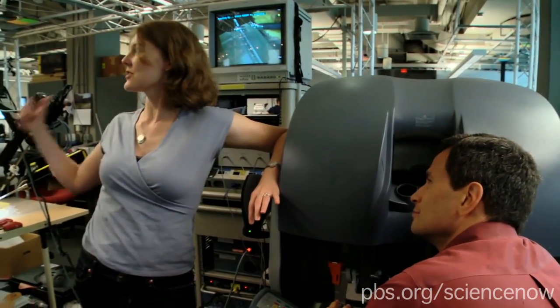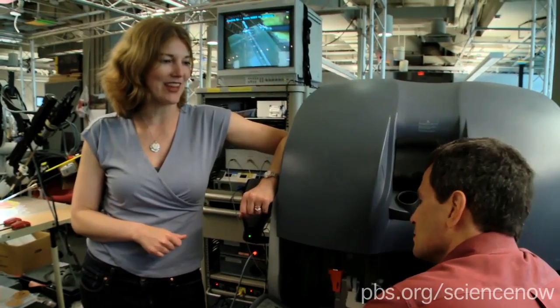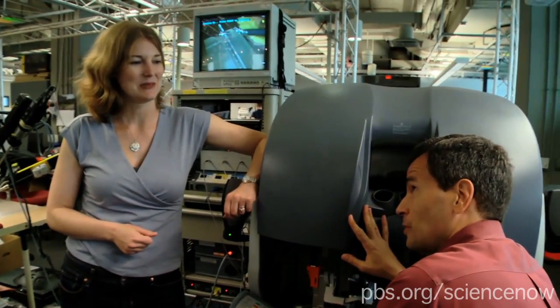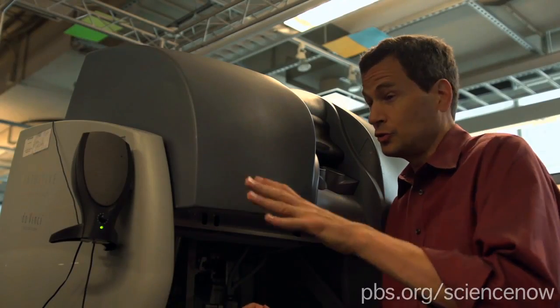Overall the system, the two sensors and the circuitry and both the actuators maybe cost a thousand dollars or a little bit more than that. So for a hospital that spent two million dollars on a robot, a thousand to make it touch-capable is like nothing. Well, I know speaking for myself, I would not want to do another surgery without it.